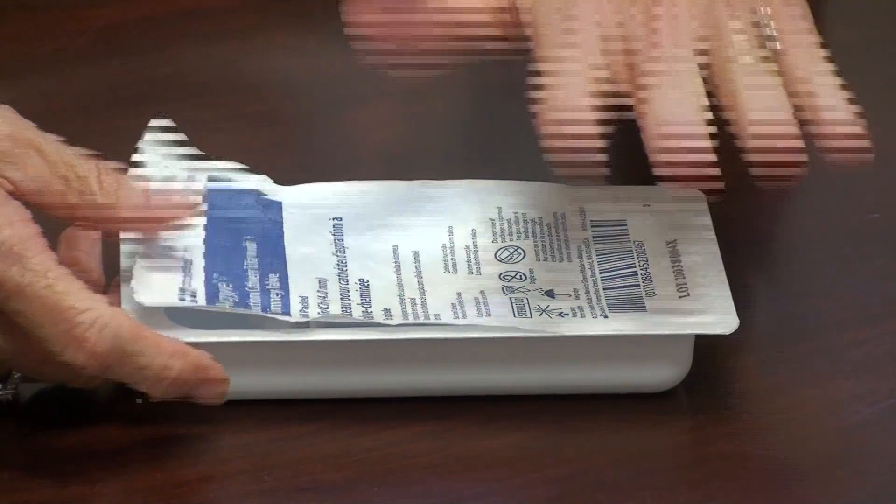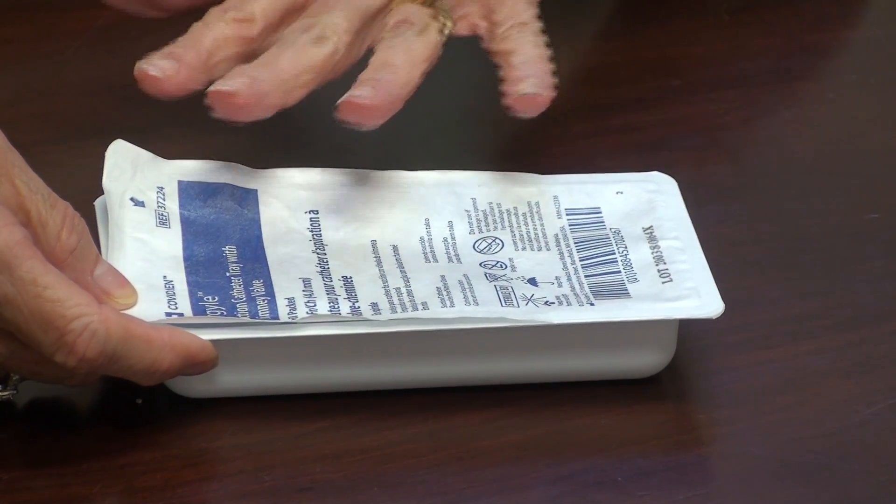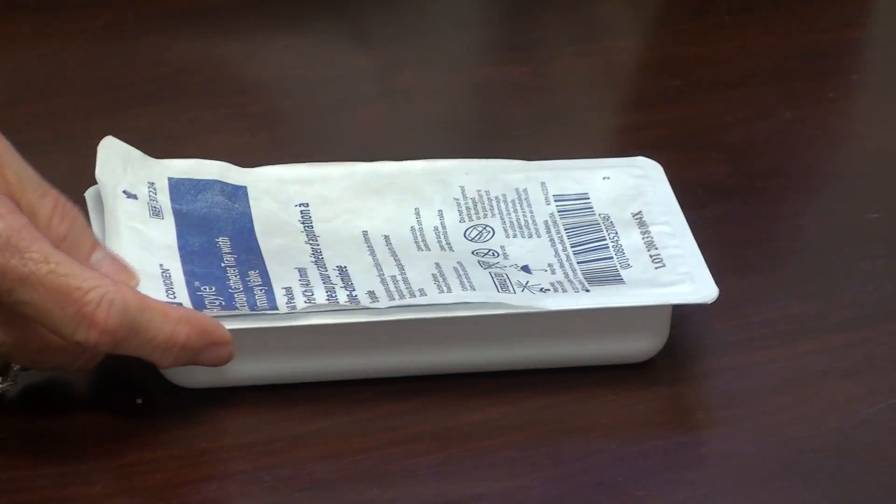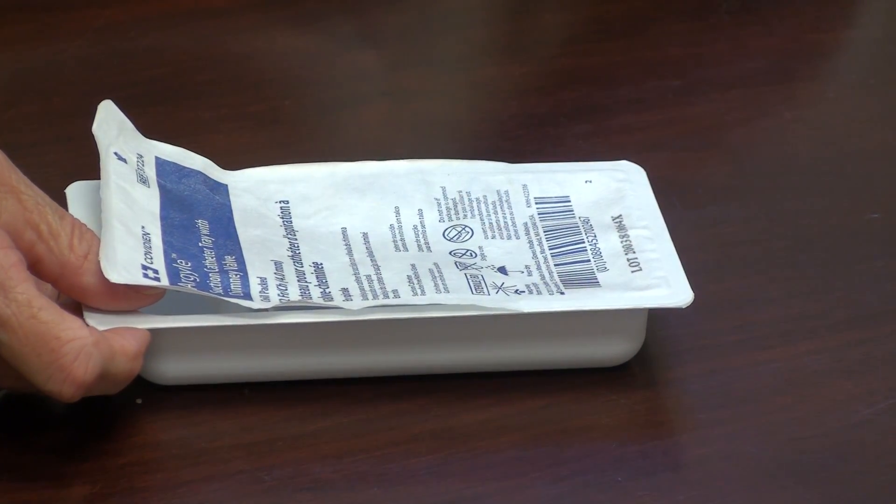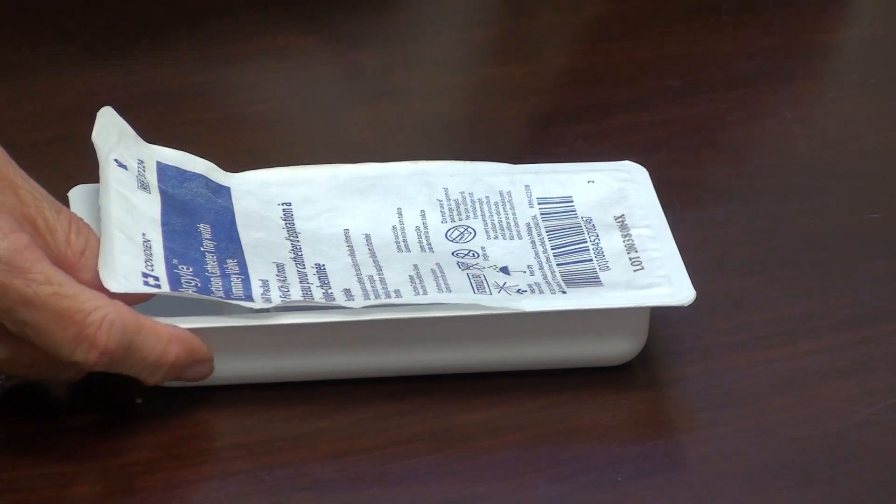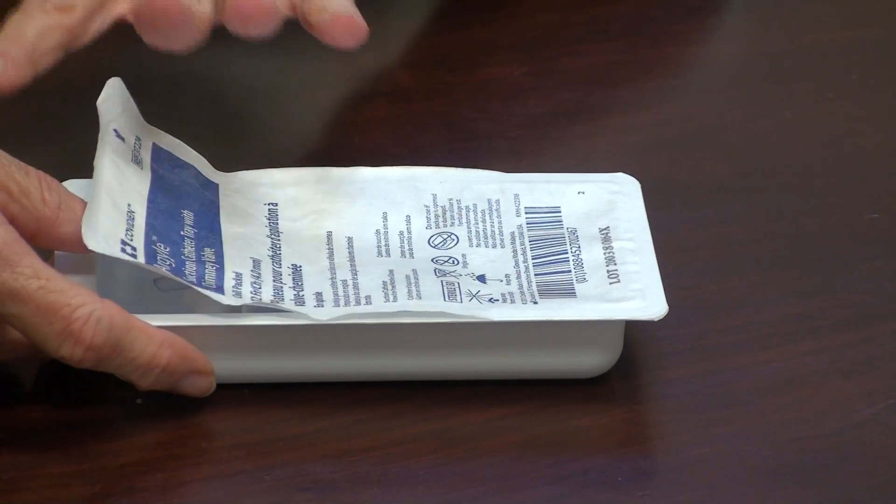All right, y'all watching the DVDs. But sometimes the kits that we get into the CSL will look slightly different than what you're going to see on a DVD. So based on suggestions made by students, we're just going to do a quick video of some of the kits that you're going to be opening so that you know what's inside of the kits that USC is providing you.